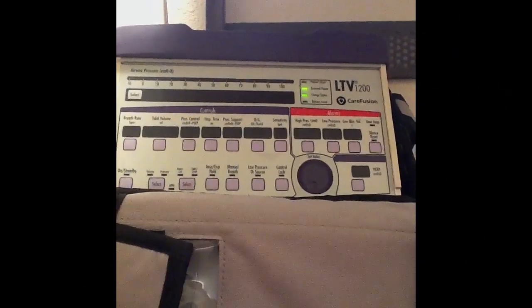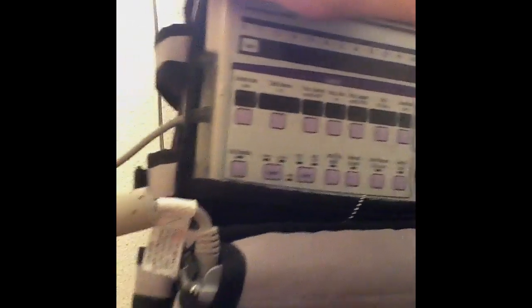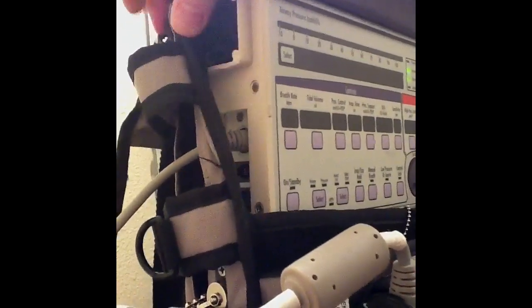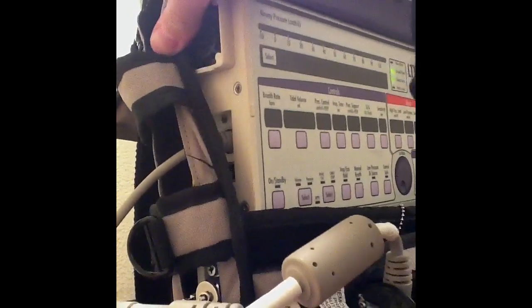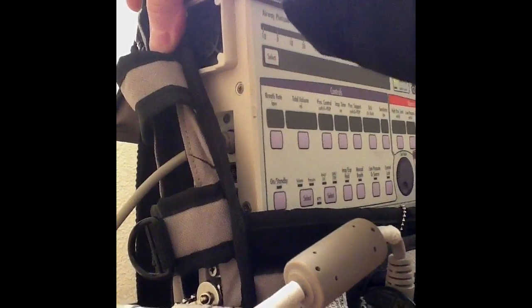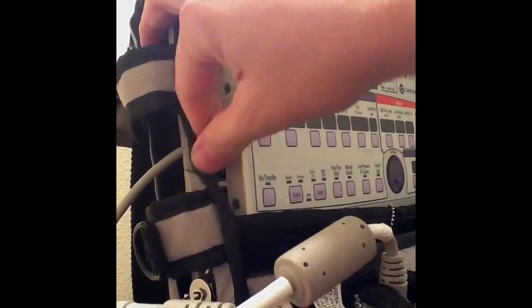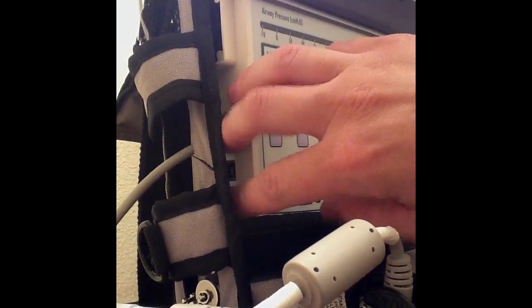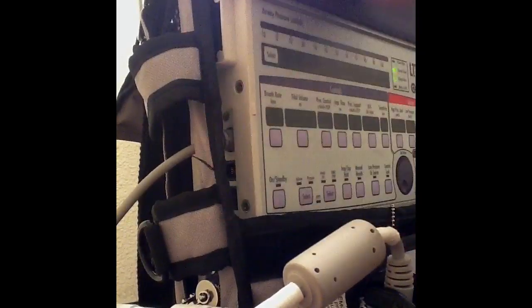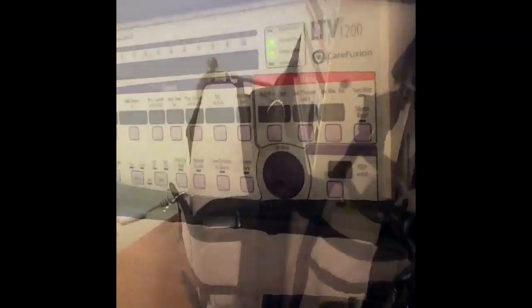Well hello everyone, this is Chris back again with The Ancient Scholar. We're just taking a look at the ventilator proper, and I'll show you just a couple more components. Over here on the side is where I have my air inlet — there's a little filter in here, and we just need to monitor that filter and change it out if it becomes dusty. There should be a protocol or guideline in place as far as how often we check that filter. You can also see where the battery plugs in, and these two little cable plug inlets — if I had a graphics package for this ventilator, which they do make, those cables would plug in here and I could actually monitor ventilator graphics. The ventilators in their current configuration do not have a graphics package, but they are easily converted. The distal tubes here are the flow, pressure, and trigger transducers.